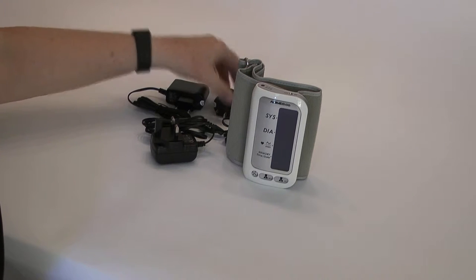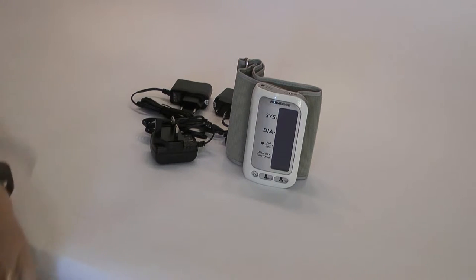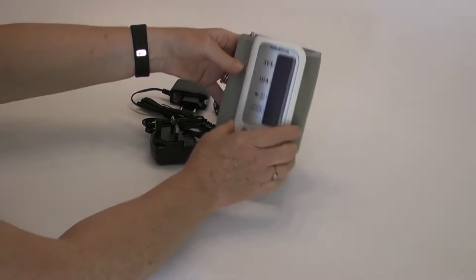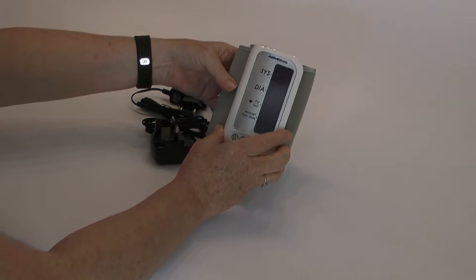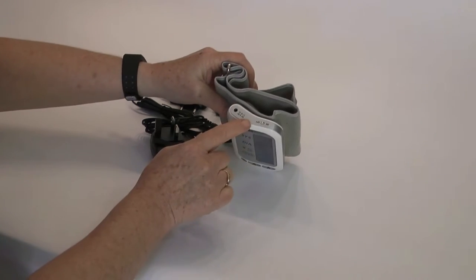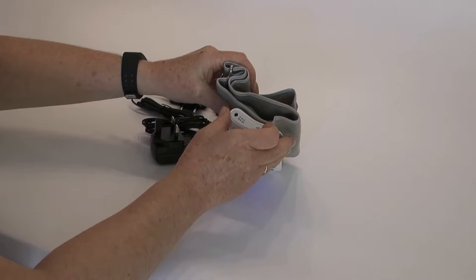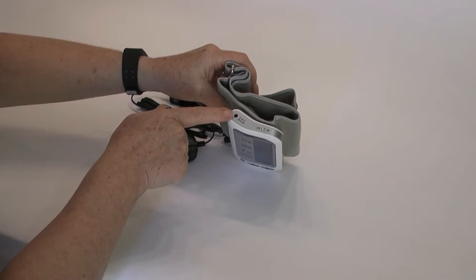The blood pressure monitor comes with three mains chargers for different international areas. The on-off switch is on the top and also the mains charger point.